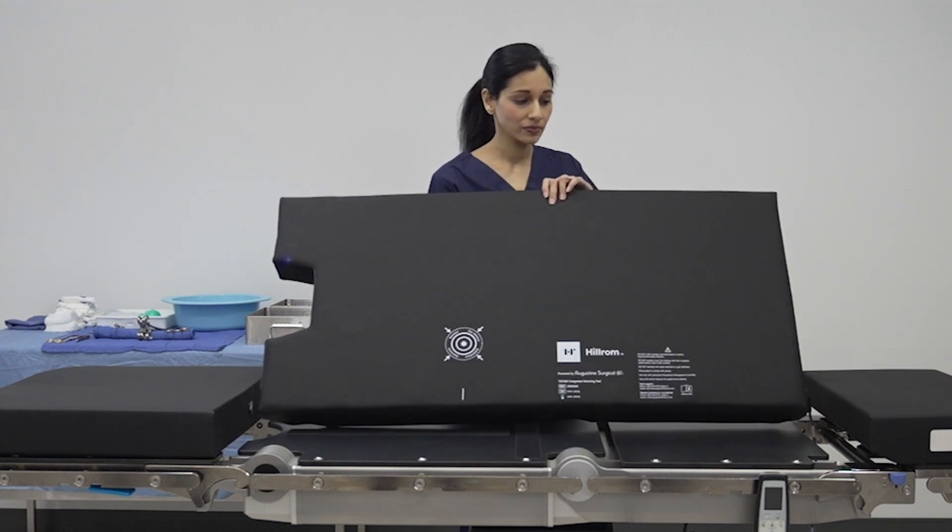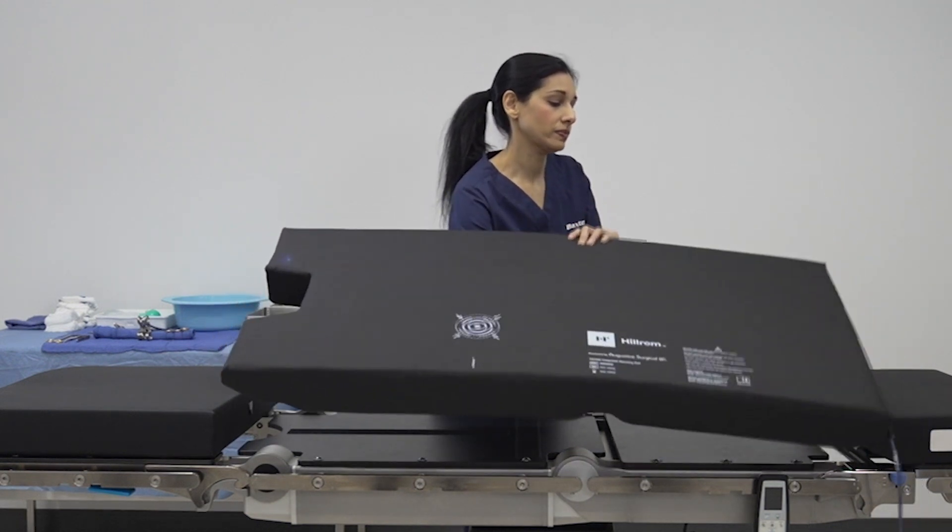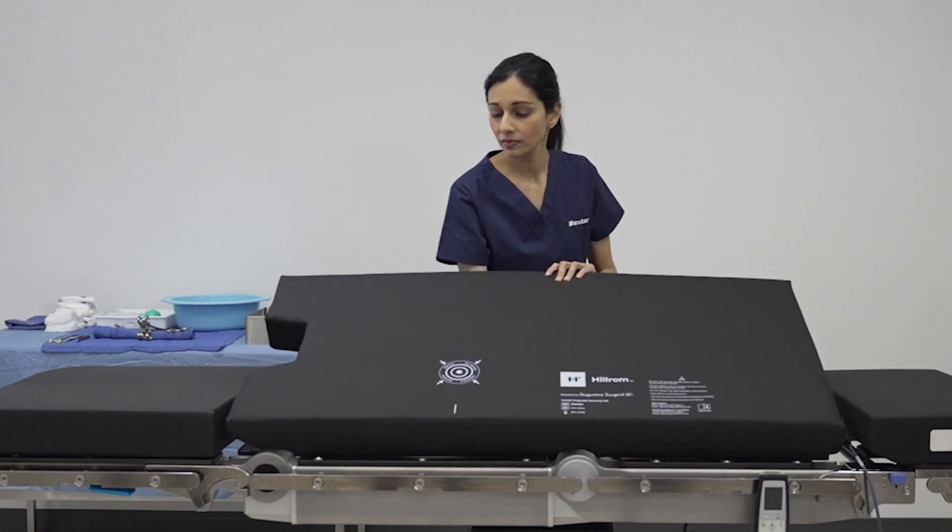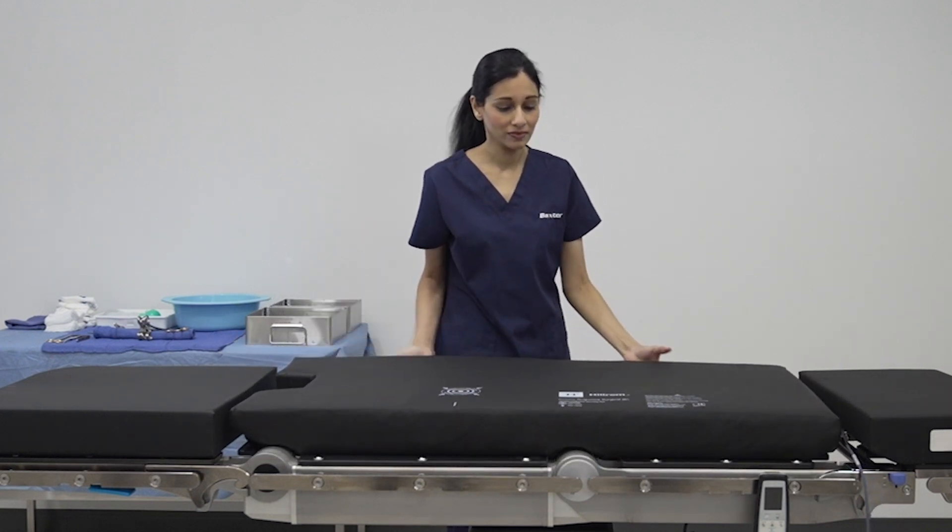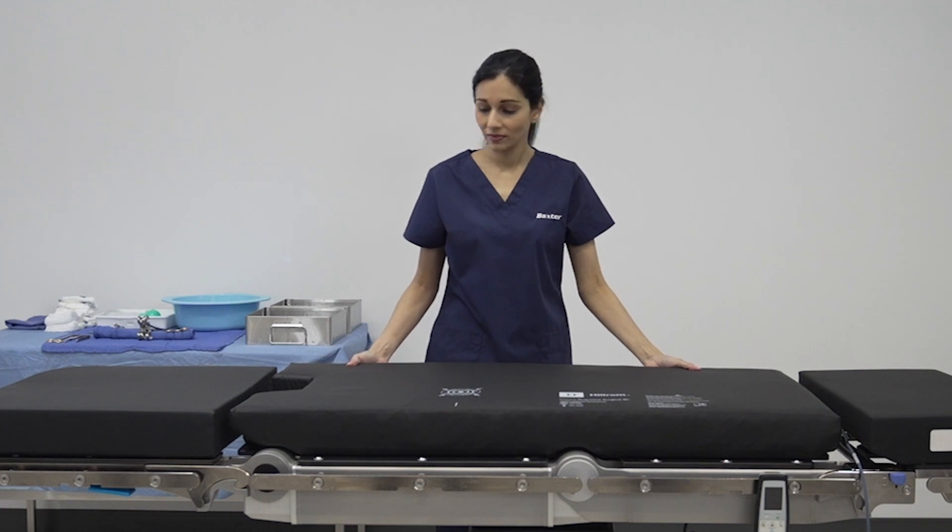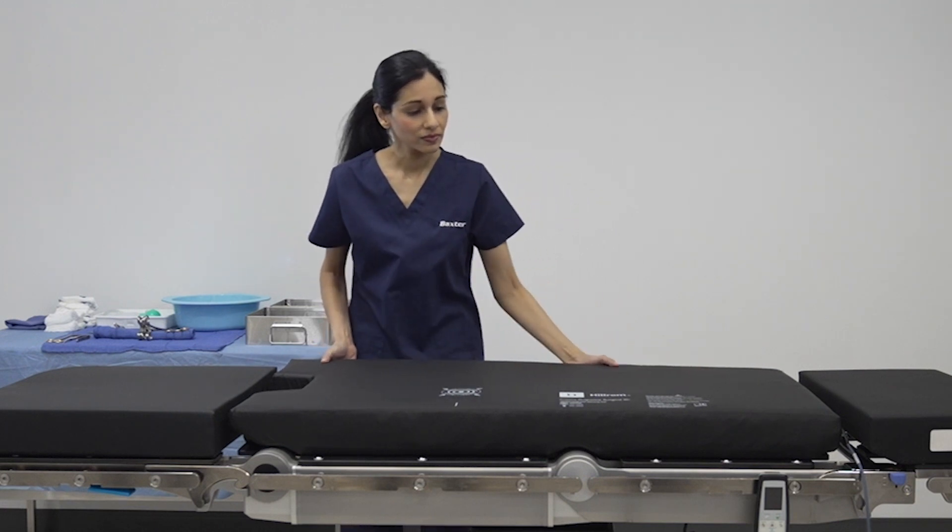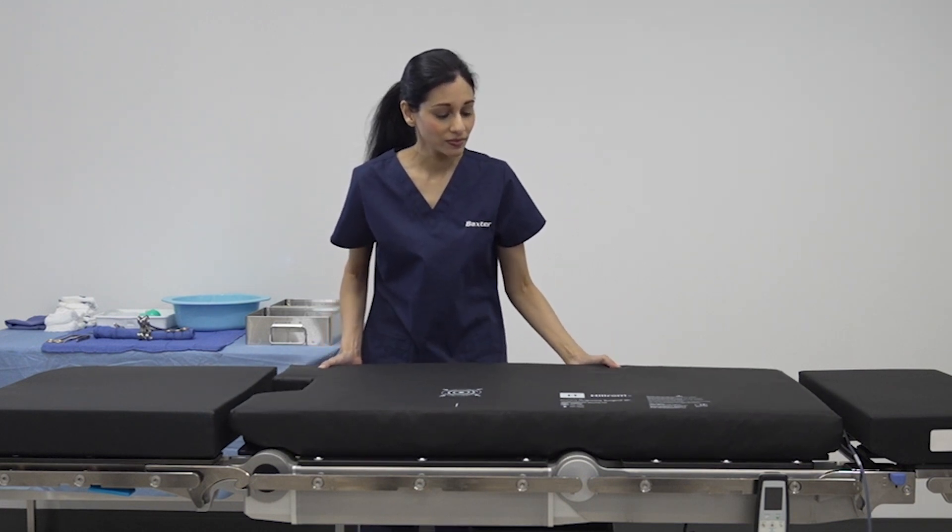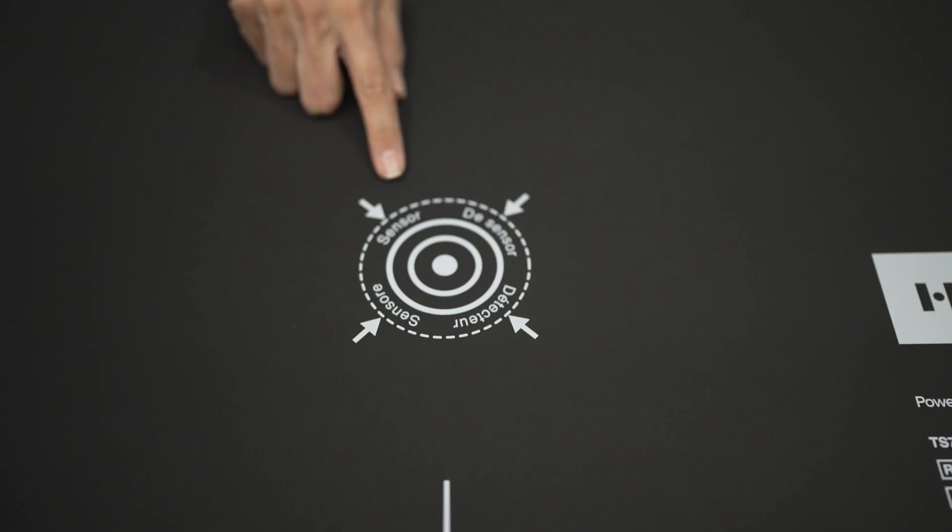A semi-conductive polymer fabric integrated into the pads provides warming. This means you will receive the benefits of our current OR table pads while including continuous, controllable warming without requiring another surface to place on top of the pad.